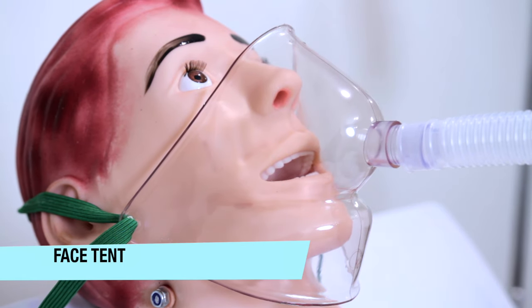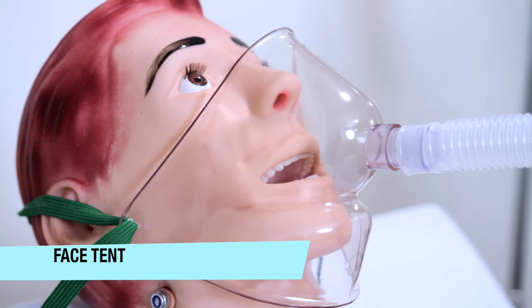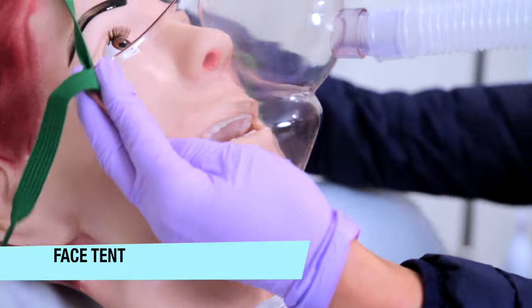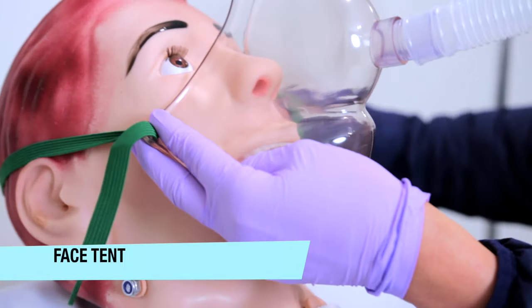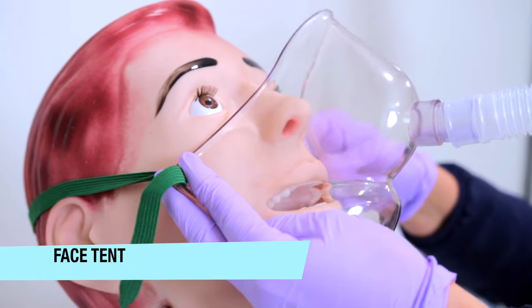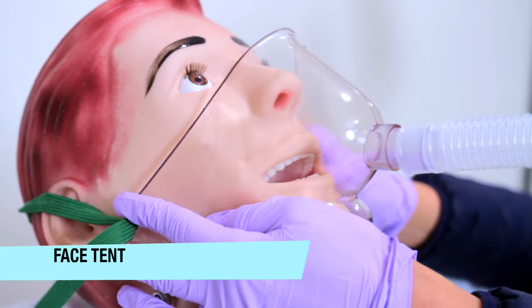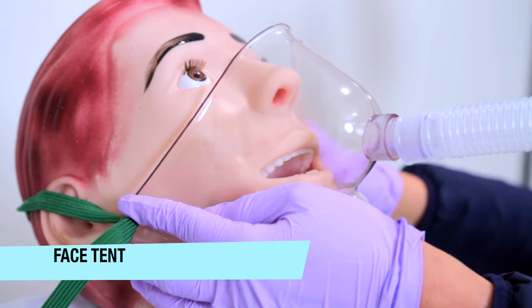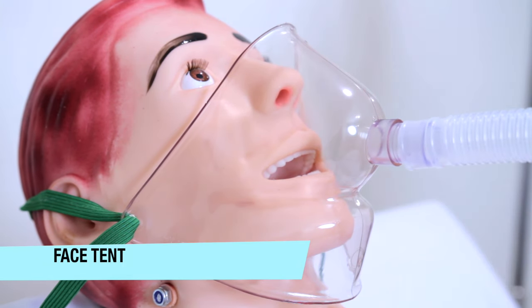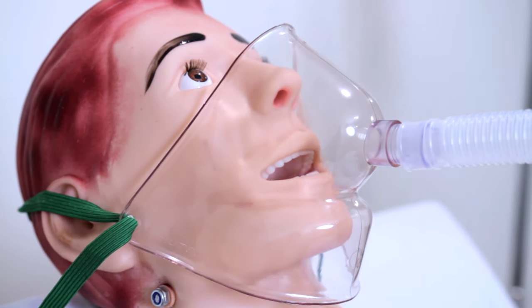Some reasons for use with a face tent are for your patients that may have had a traumatic facial injury like a broken nose or facial burns and cannot tolerate a tight confining mask to the face, or could be claustrophobic.